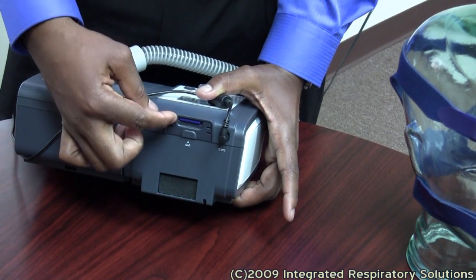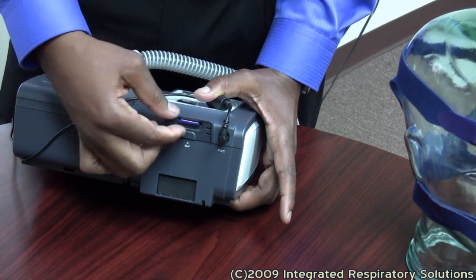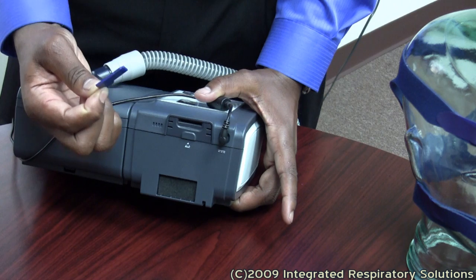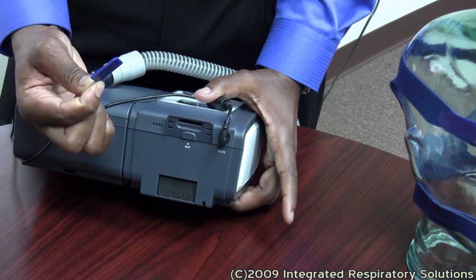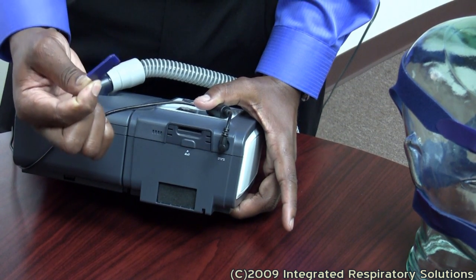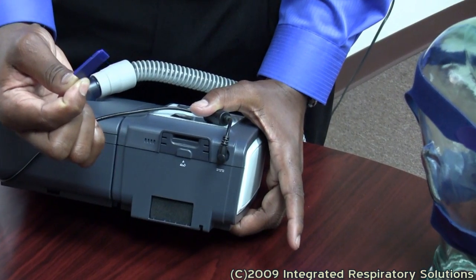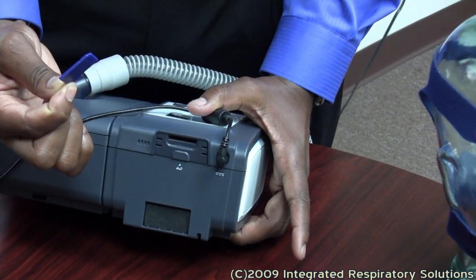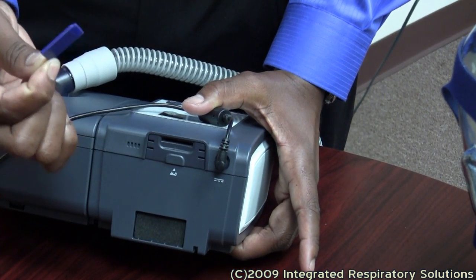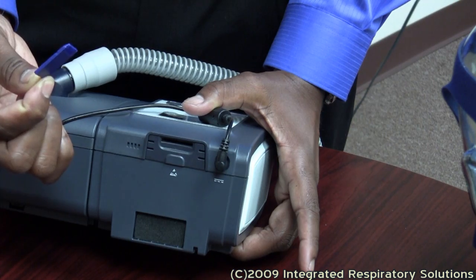An SD card — this piece records information while you sleep. This is what your doctor needs to do a successful follow-up with you. It captures negative events while you sleep.